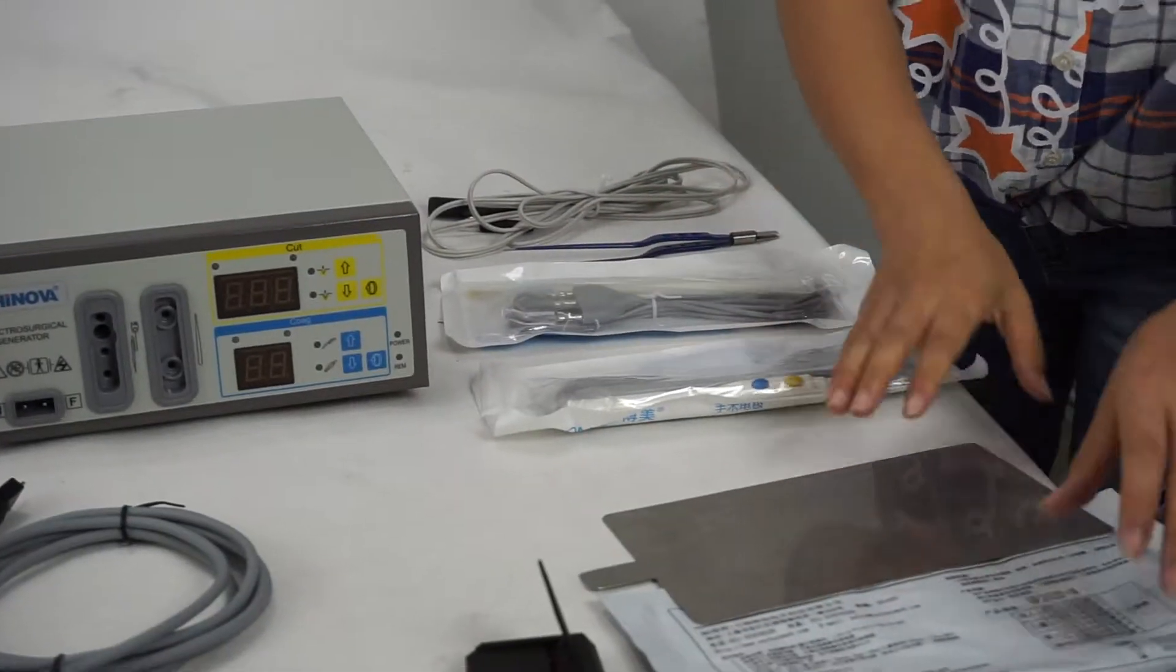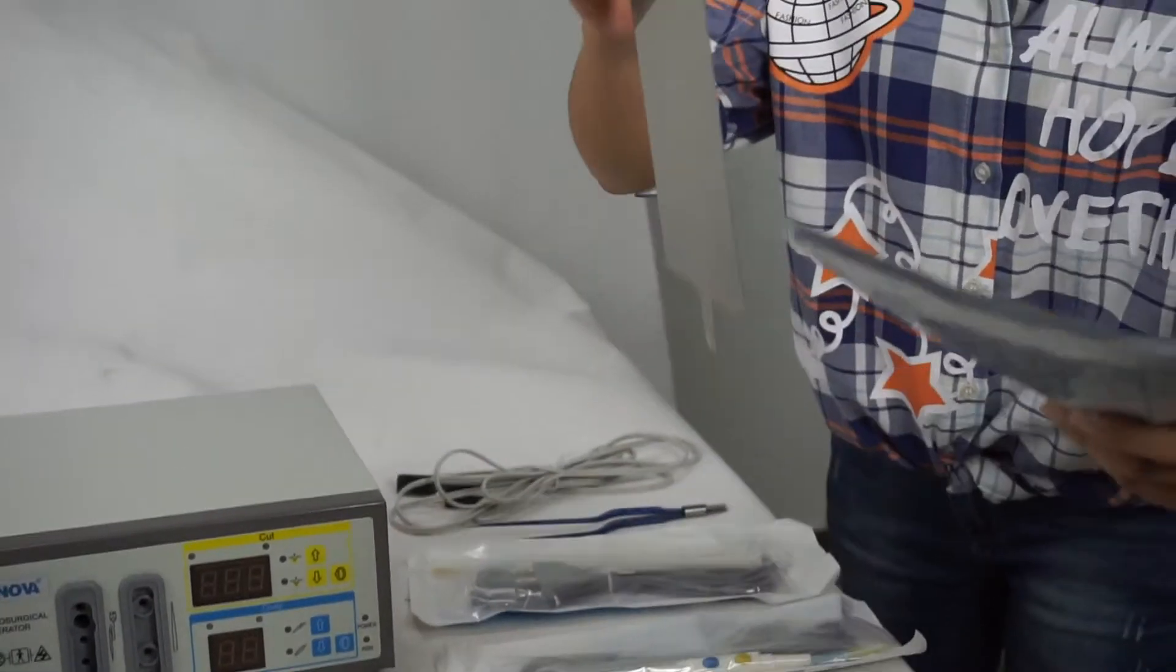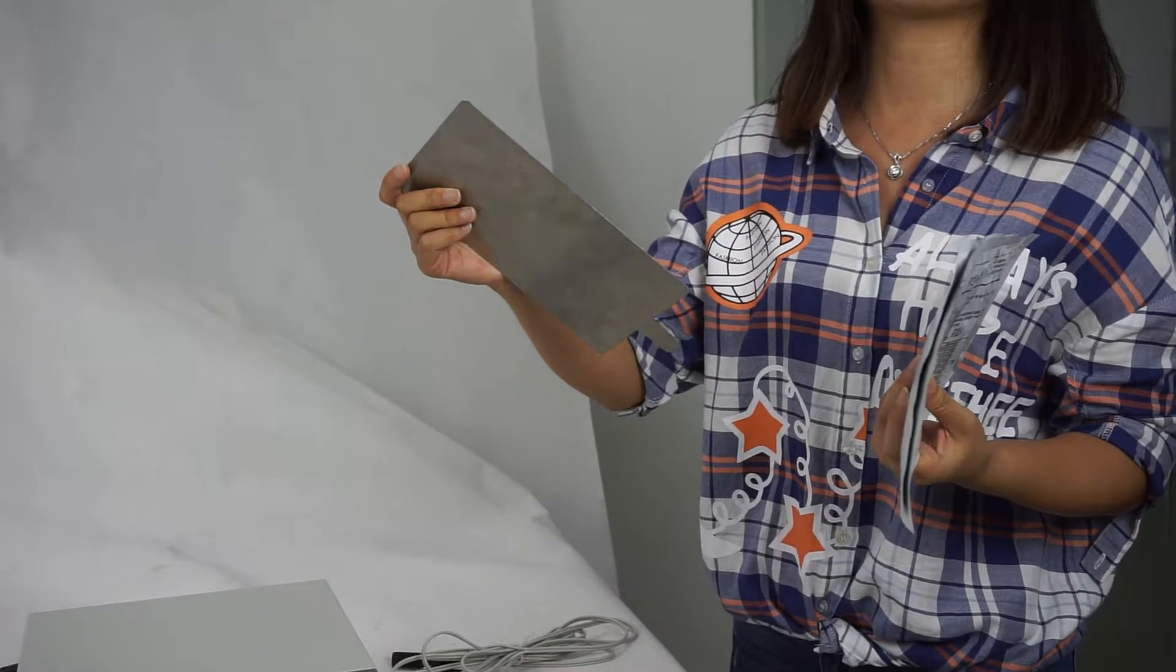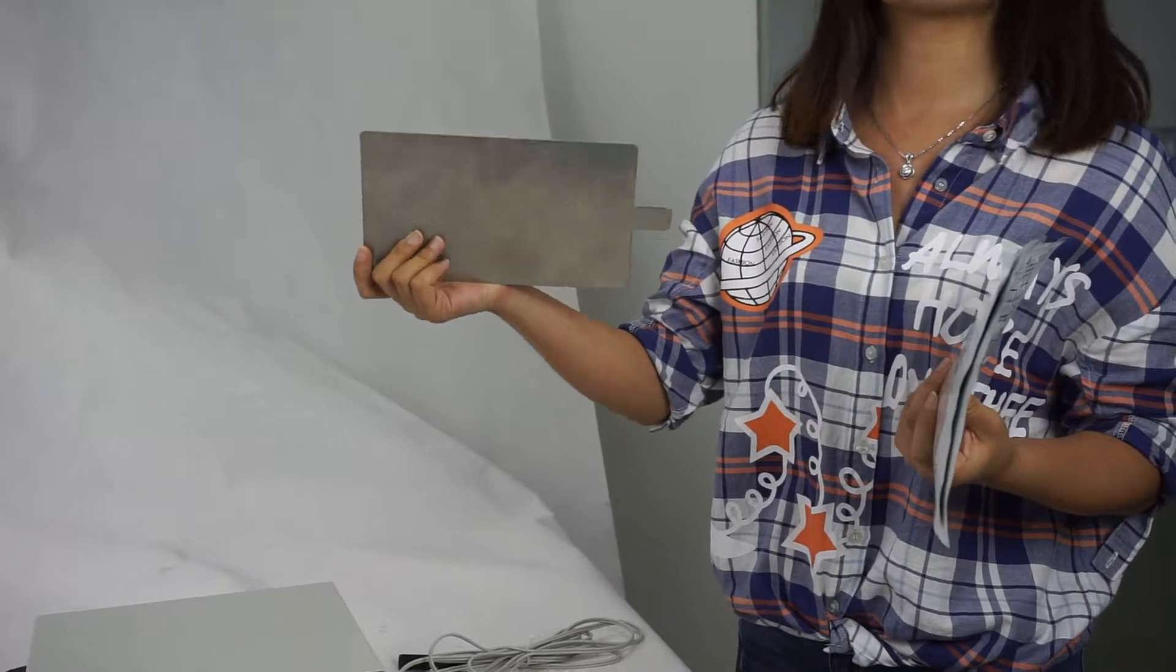Next is the patient plates. These tools are disposable and this is reusable, which is optional.